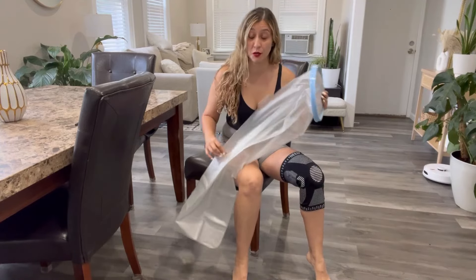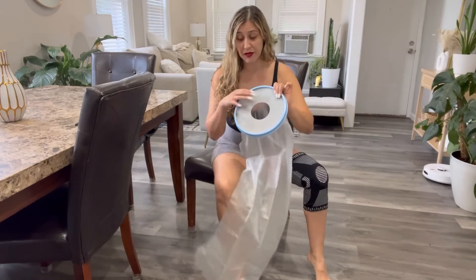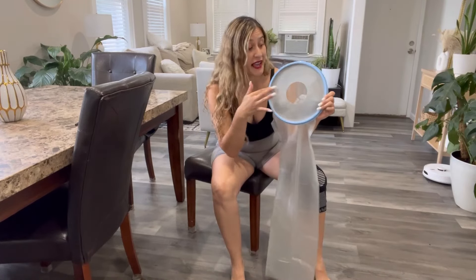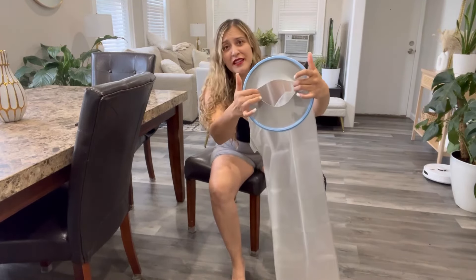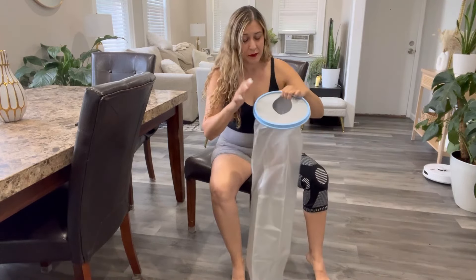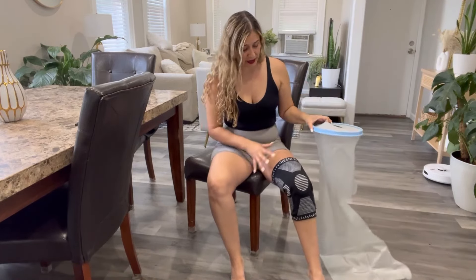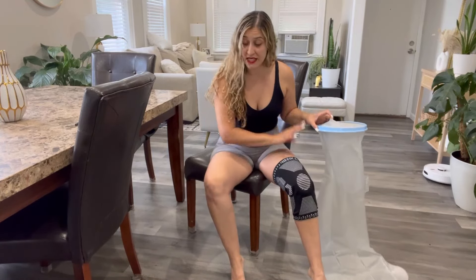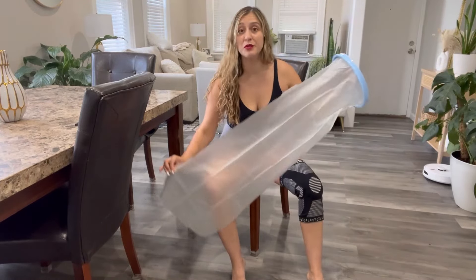This product comes with a 9.85 inch diameter right here, and you can stretch this rubber up to 8.5 inches. Basically, that is going to allow you to fit thigh circumferences ranging from 16.3 to 25.5 inches. So it is pretty standard — this is an extra large leg protector.